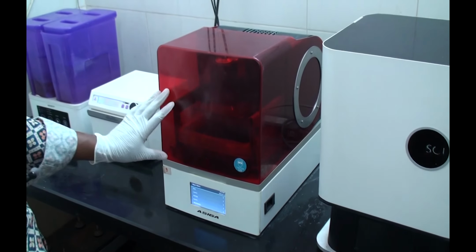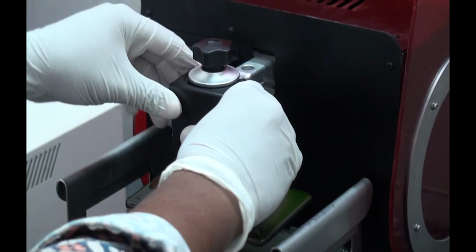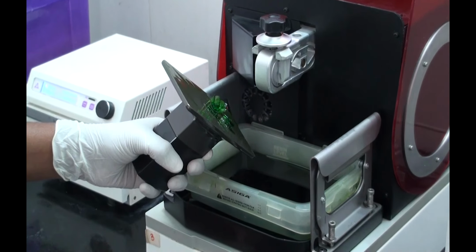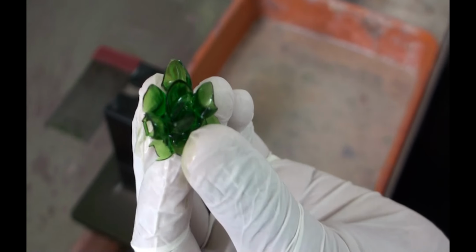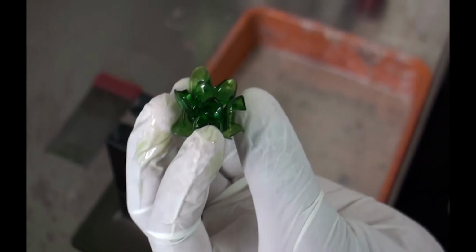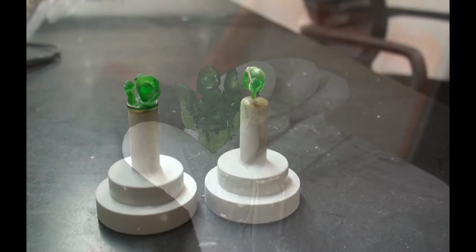That's our 3D printer. Printing is just finished. And you'll see in a minute the printed model. There we go. So we can see there are quite a few units in there. Some crowns, some veneers. And that's the finished product. It's been cleaned up and you can see a few angles. That's the printing done. That's a ready wax pattern.